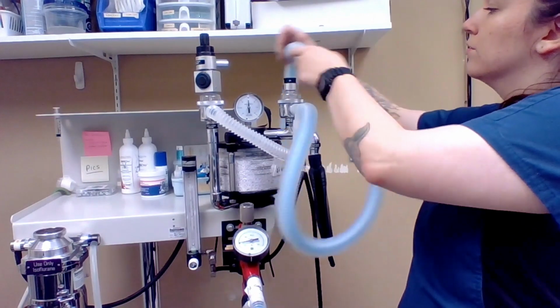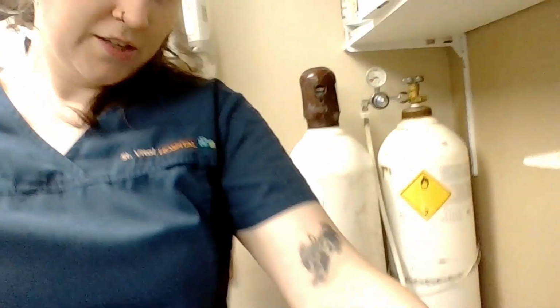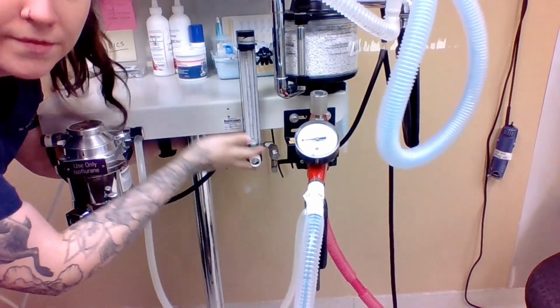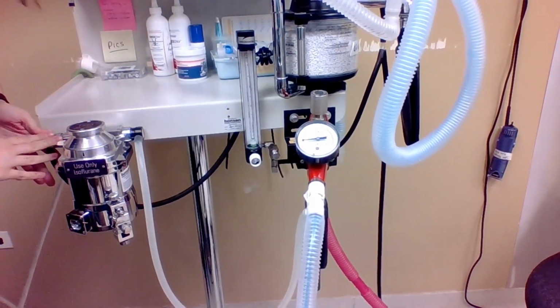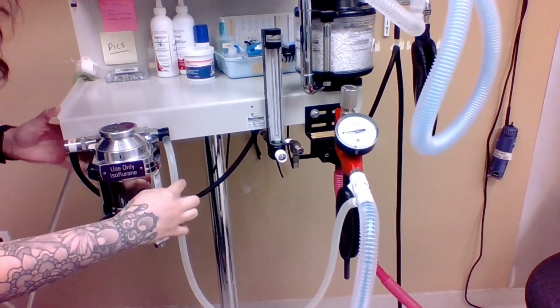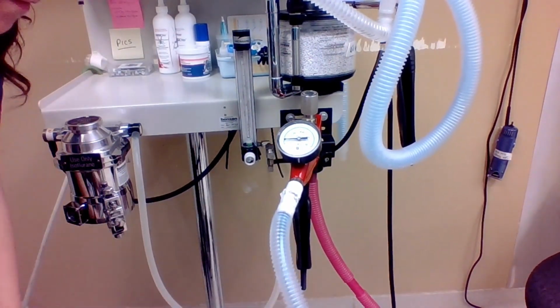So I'm going to show you the oxygen flow of the Bain system. So same idea, we start with our oxygen tanks with our oxygen reducing valve here, down through this white line. Again, we connect down through here to our flow meter, up the flow meter through here to our inlet. So this is our vaporizer inlet, our vaporizer system where the isoflurane is introduced, and then our vaporizer outlet. So this jumps through here to our inspiratory section of this circuit.